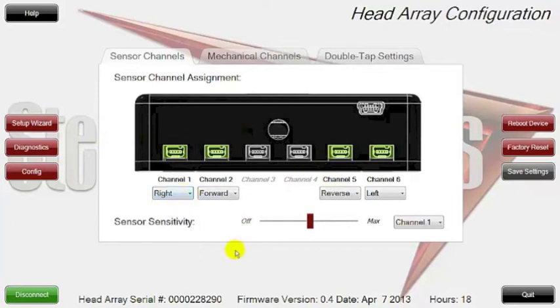If you want to change them at any time, just click on the port, click the down arrow, and you can reconfigure them. This gives you a good layout of how they're all configured and set up. With this drop-down menu you can also work on the sensor sensitivity — meaning you can set the distance and range of the sensor. If you want to bring it closer to the pad where somebody needs to touch to get activation, or set it to max level where someone just gets close to the pad and it activates — this is a really nice area for highly configured port selections.